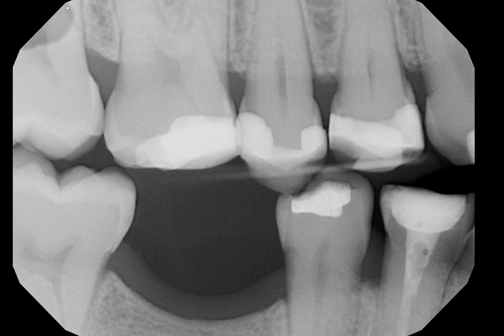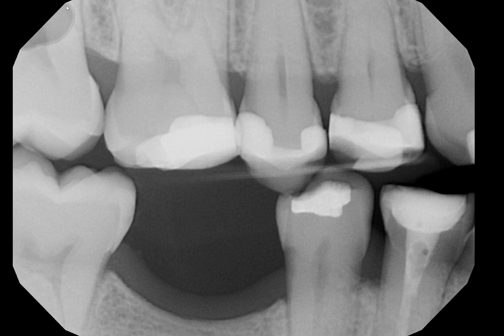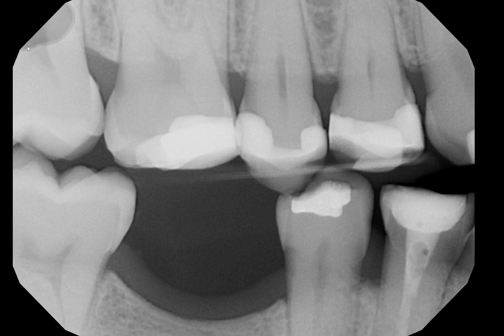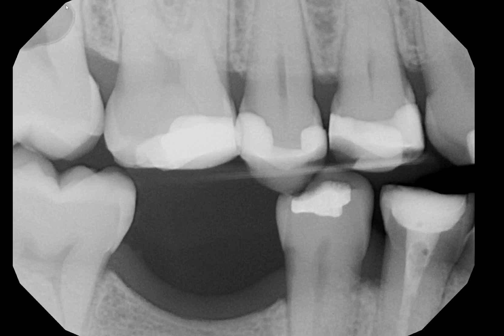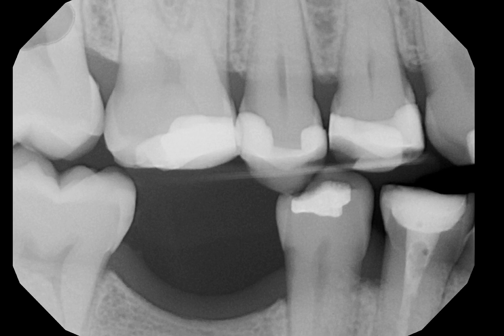So, having seen that this is present in all the other radiographs taken as part of the CMS, or also known as FMX, what is your most likely explanation for this appearance? That's the quiz of the day. How do you explain what is the most likely cause of this radiolucency located at the corner of each radiograph? Thank you very much.